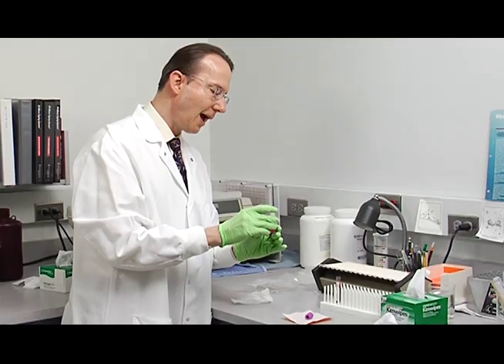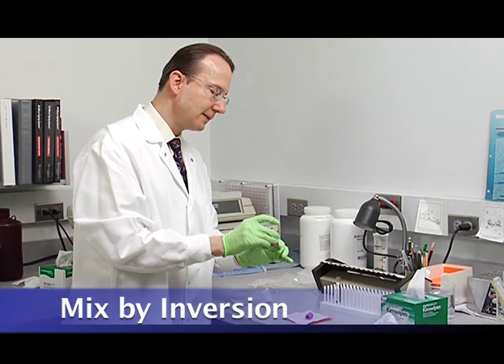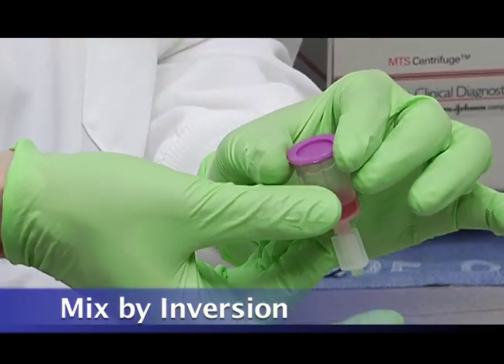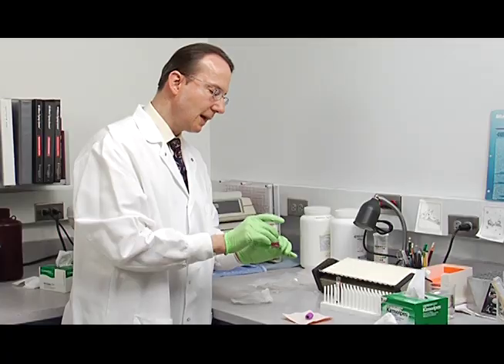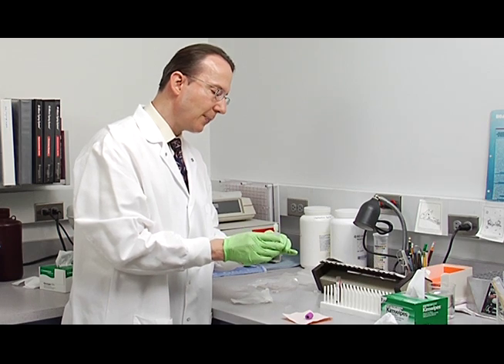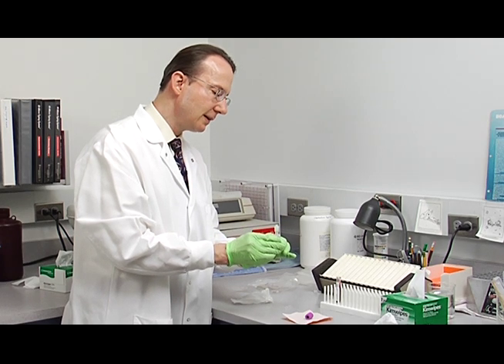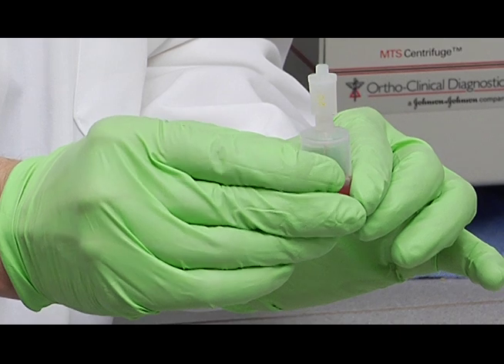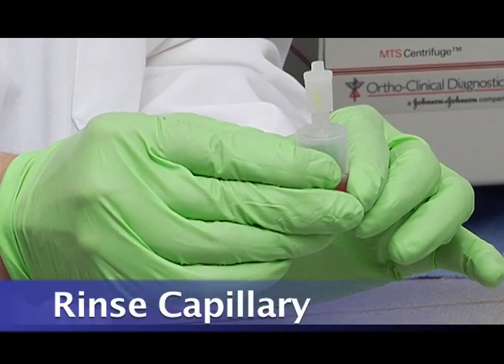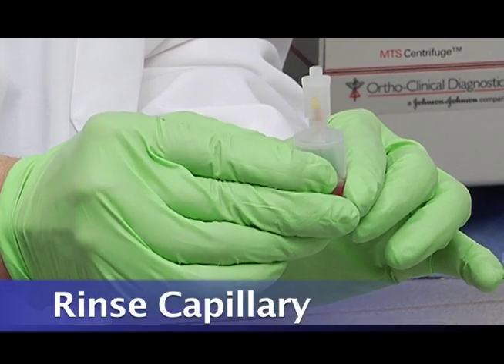Now you want to mix it good by inversion several times. And then you're going to rinse out the capillary tube by squeezing here several times. You can see the liquid rising up in the tube. You don't want it to go so far that it comes out the top, though.